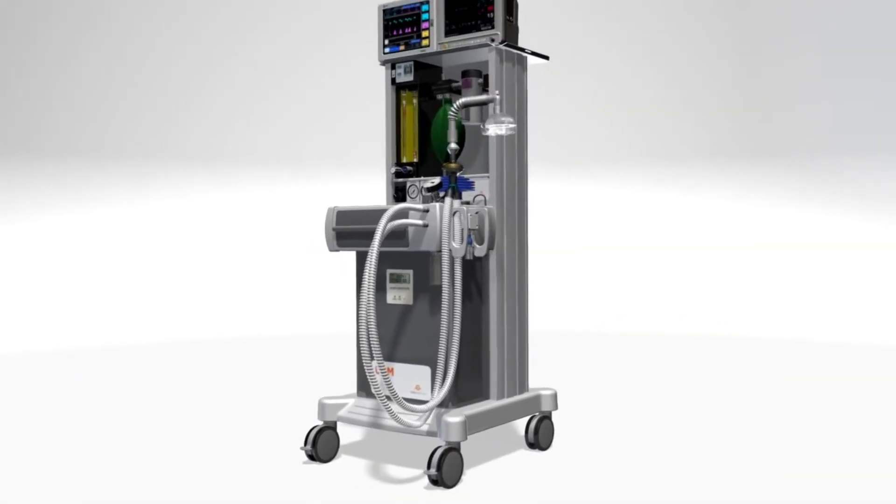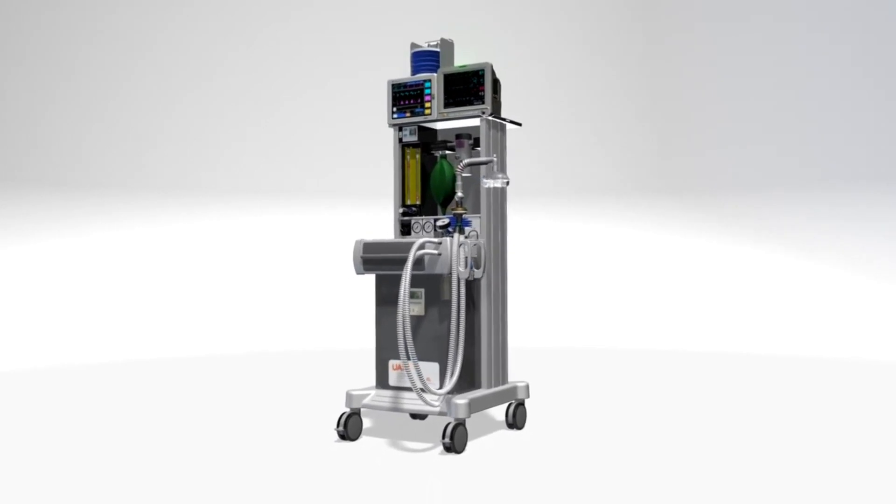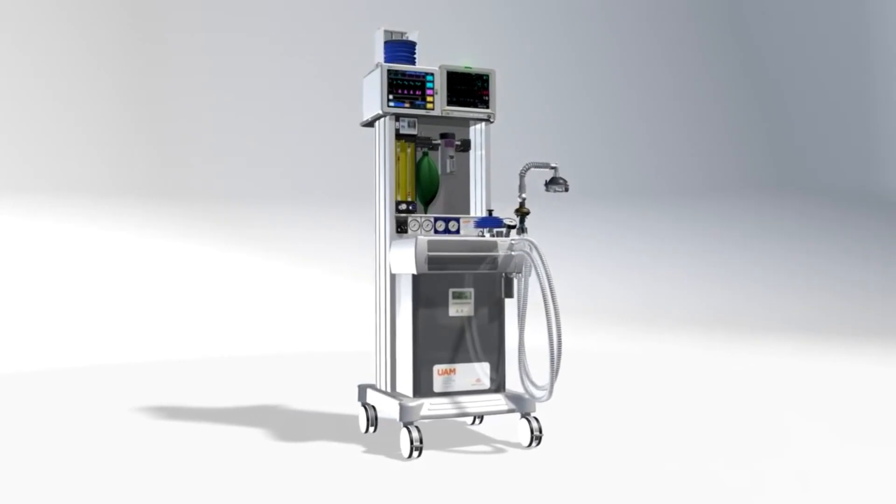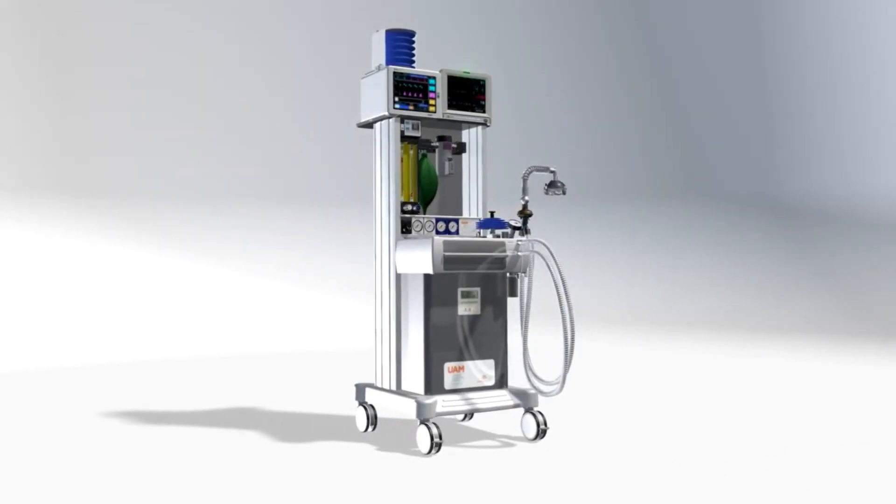Active systems require a means to protect the patient's airway from the application of suction or buildup of positive pressure. Passive systems require that the patient be protected from positive pressure buildup only.